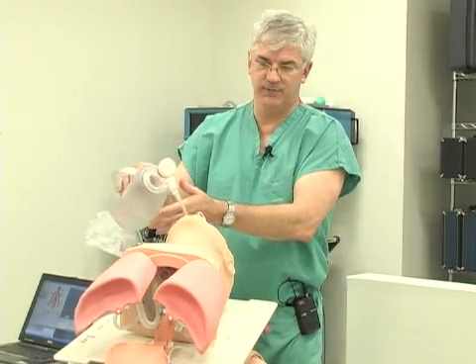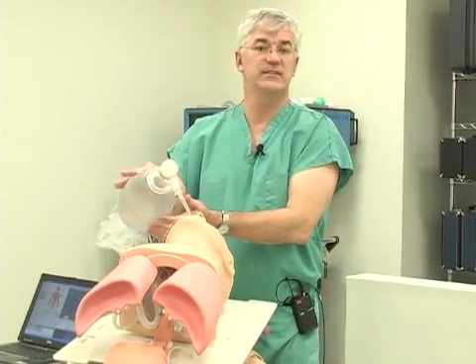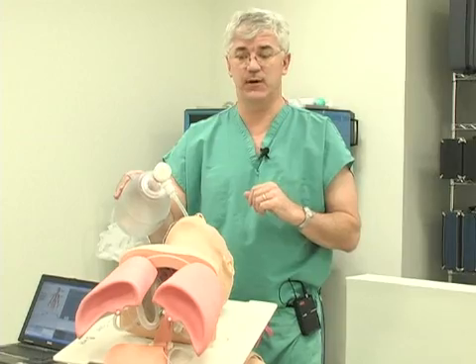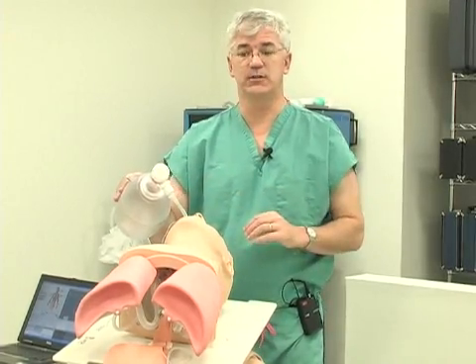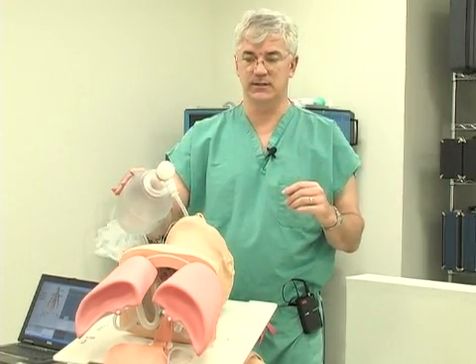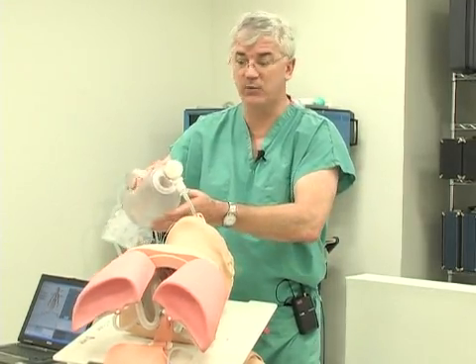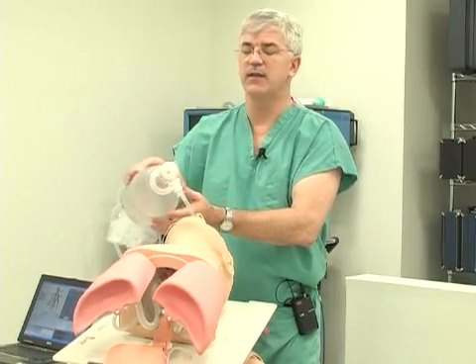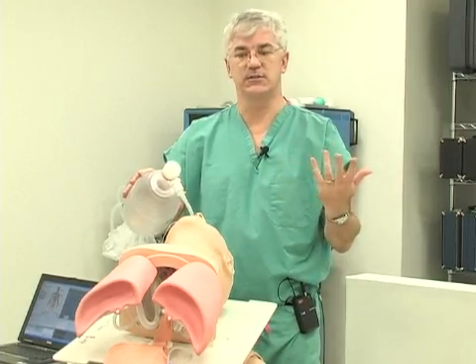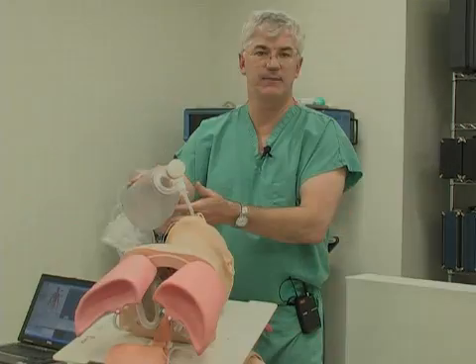You want to make sure your ventilations ventilate both lungs — you don't want a right main stem intubation. Confirm the tube is in the right place using at least two methods: listen to the chest, use an end-tidal CO2 detector, and listen over the stomach. A critical point in ACLS today is not to hyperventilate or overventilate. In a code, we used to ventilate like crazy, but this causes a significant decrease in venous return and worsens resuscitation outcomes. Once intubated, just breathe ten times a minute.